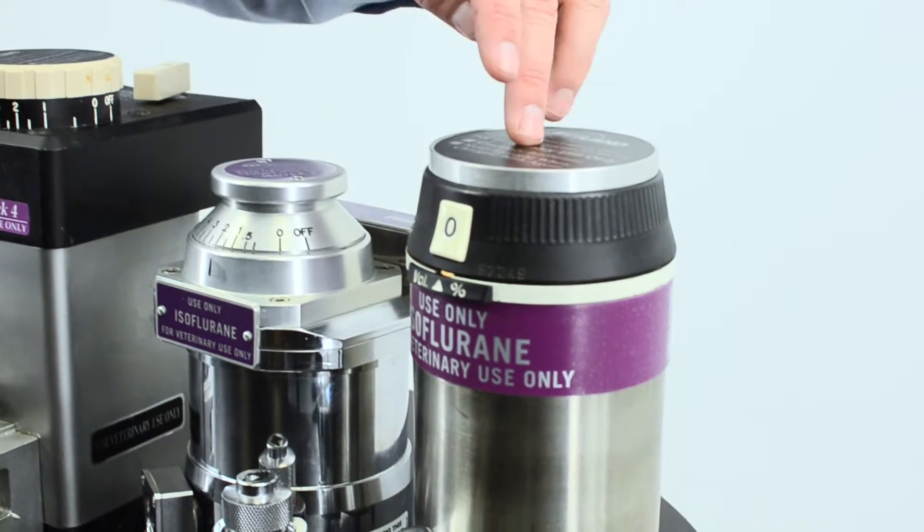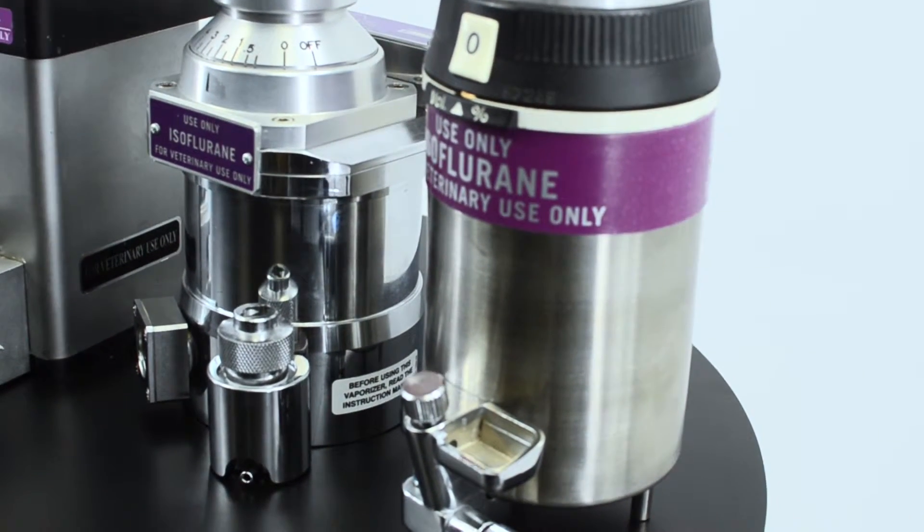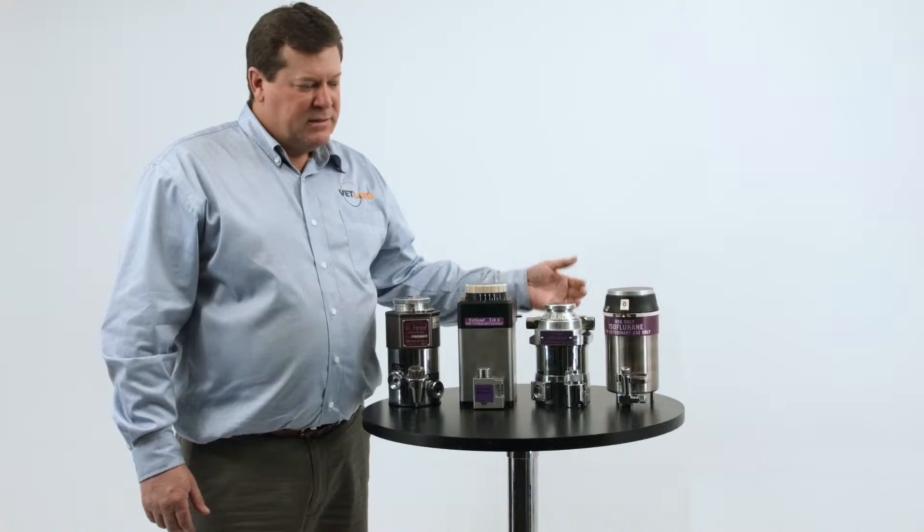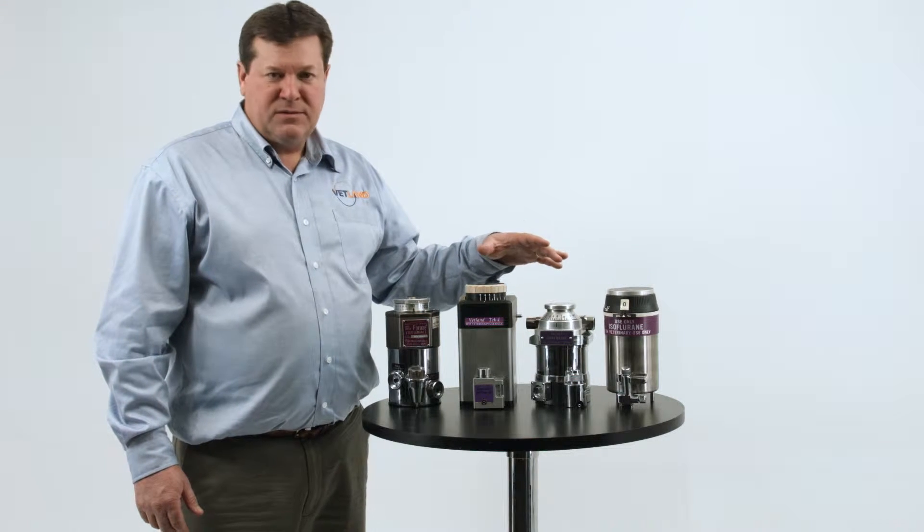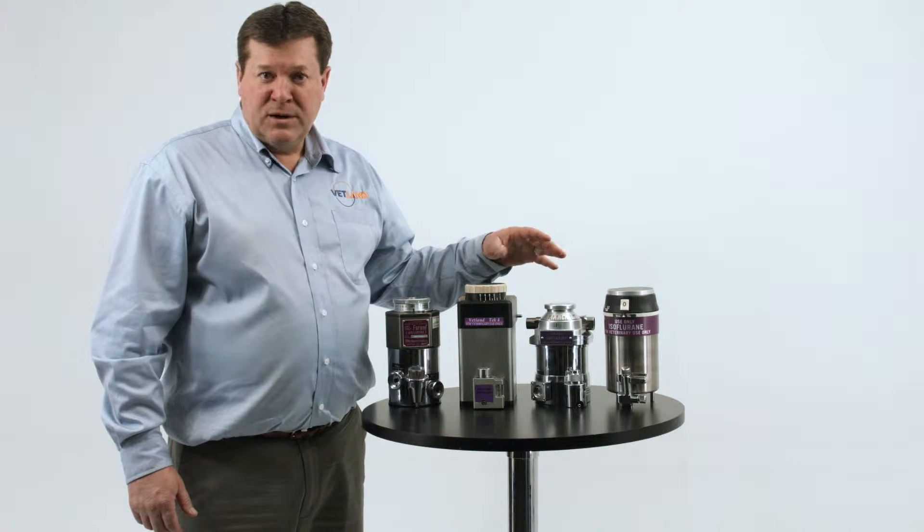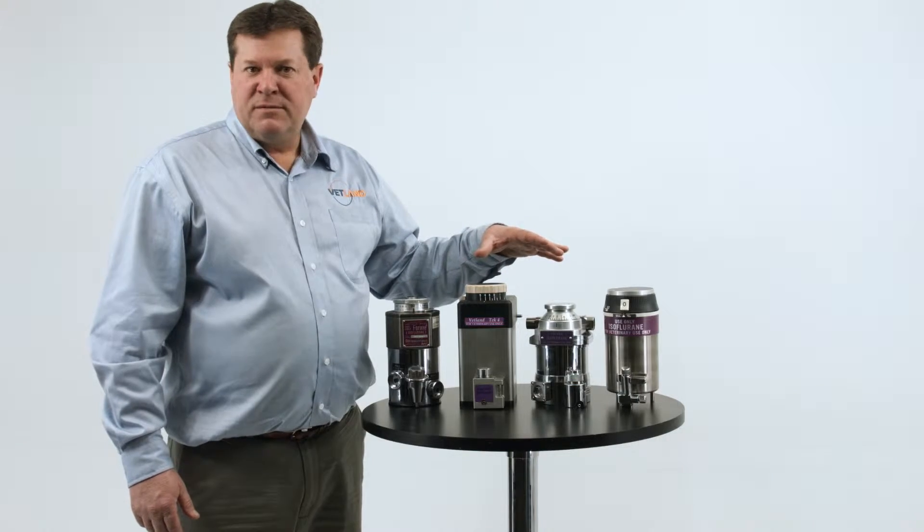This is our featured vaporizer for obvious reasons. However, our machines can accept any of these. They come available in isoflurane or sevoflurane, key fill or funnel fill.